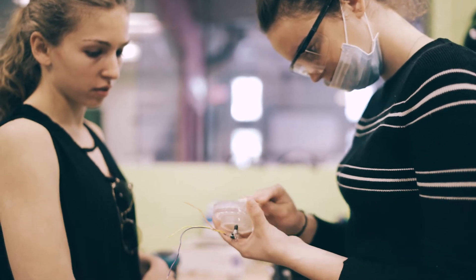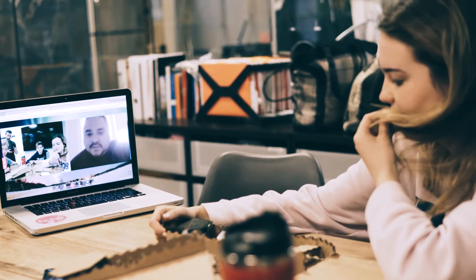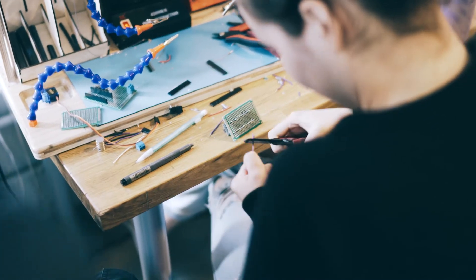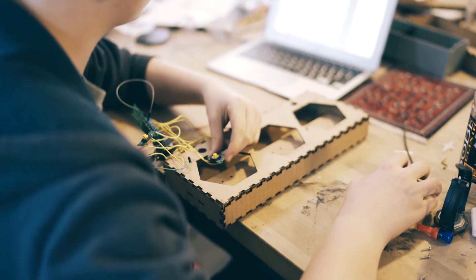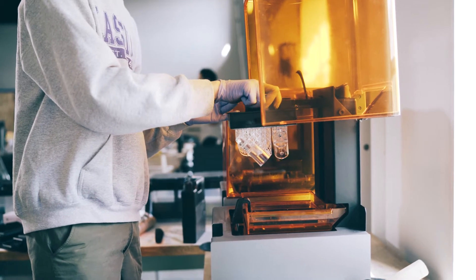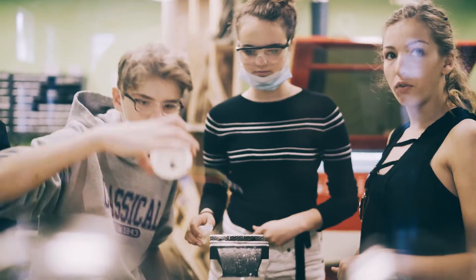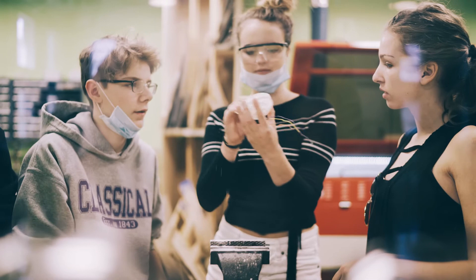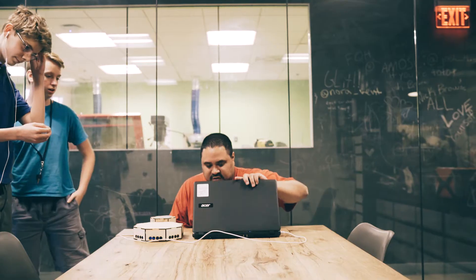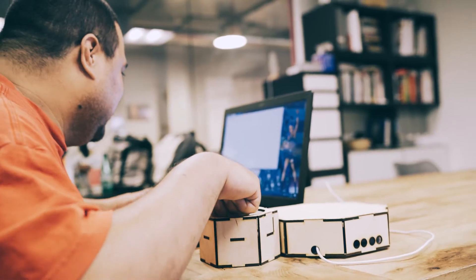My group and I are working on a project for a man named Ray who was paralyzed in his later 20s and he has a really hard time using his hand because he can't move his fingers. Our project is essentially a way for him to type without using his fingers — by making a fist and pressing a button. This button is connected to the keyboard, and he has access to move the button to whatever key he wants and then press it with his fist.